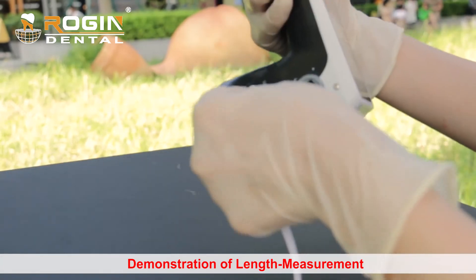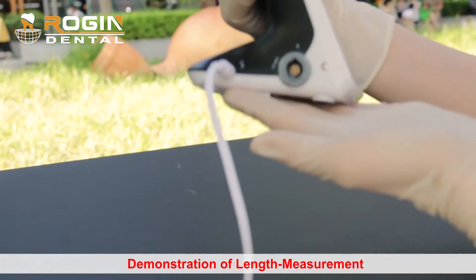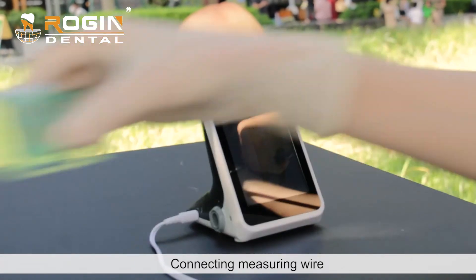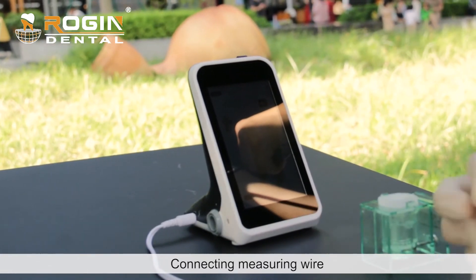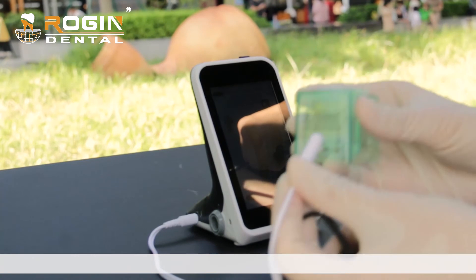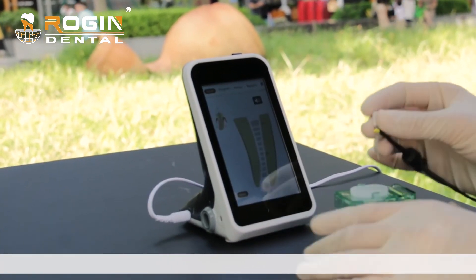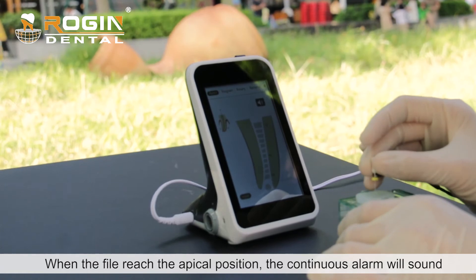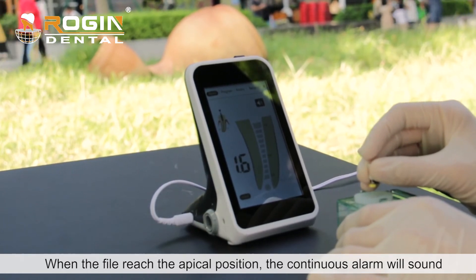Demonstration of length measurement. Connect the measuring wire. When the file reaches the apical position, a continuous alarm will sound.